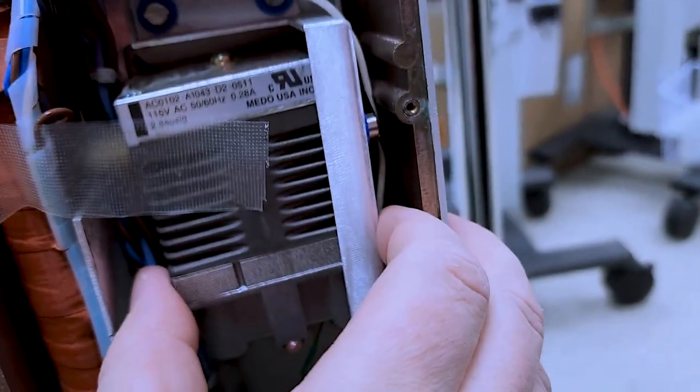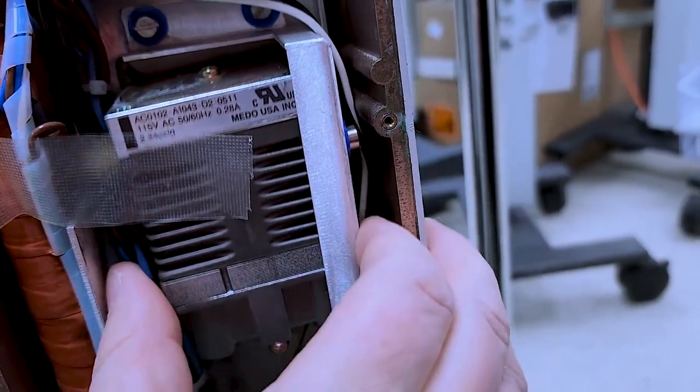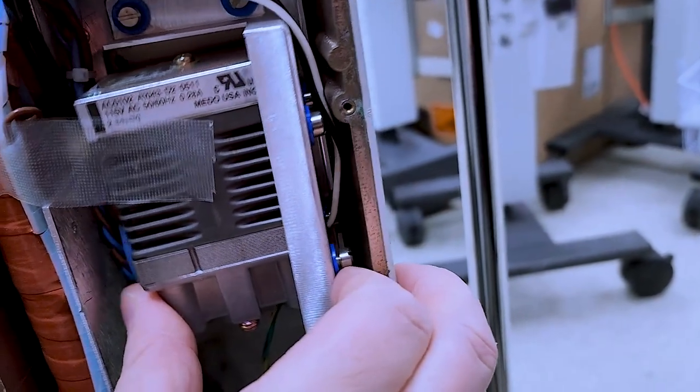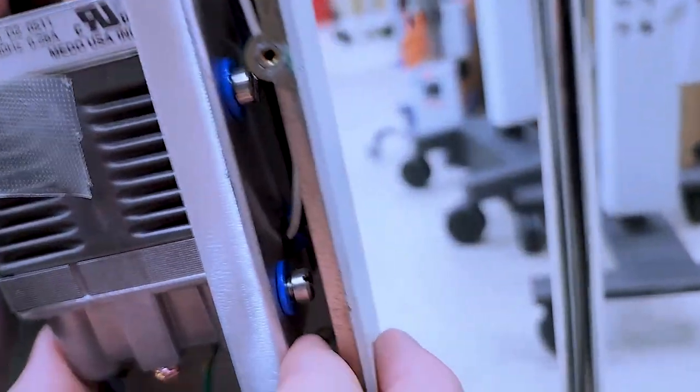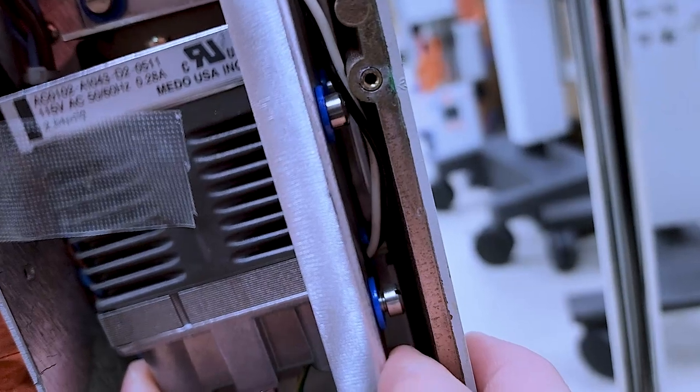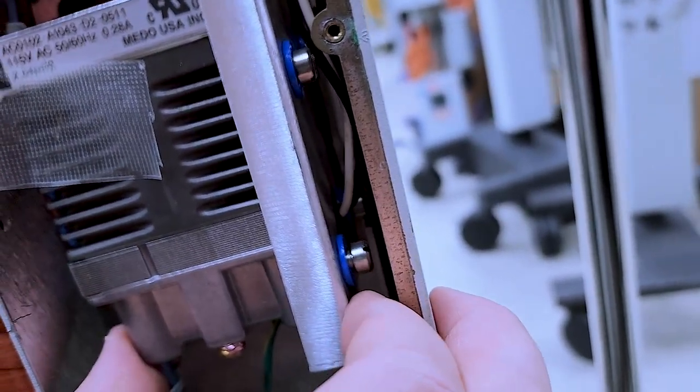So, right here, you can see I put a little bit of tension on it. And it solves that problem. See that shoulder screw? See that screw right there? It's loose.